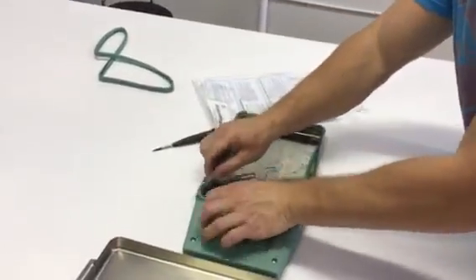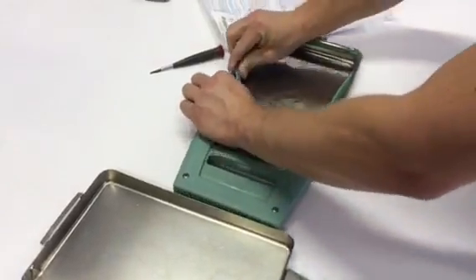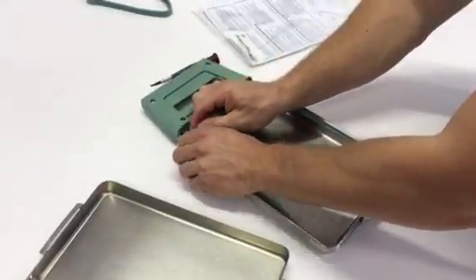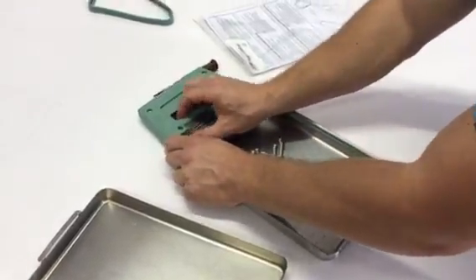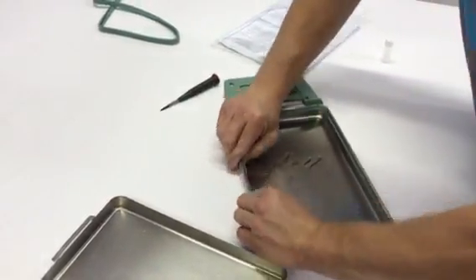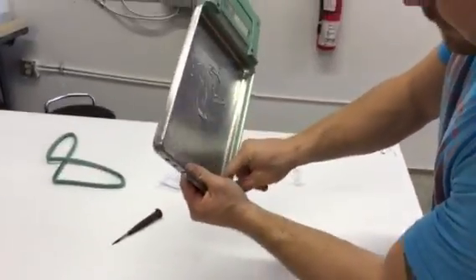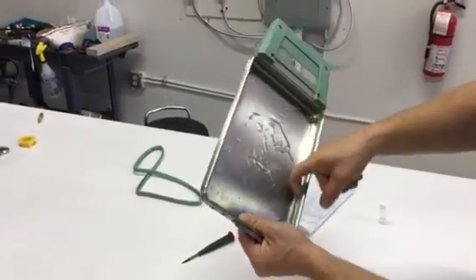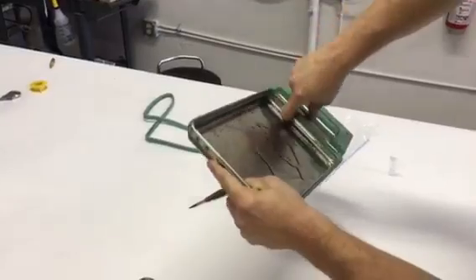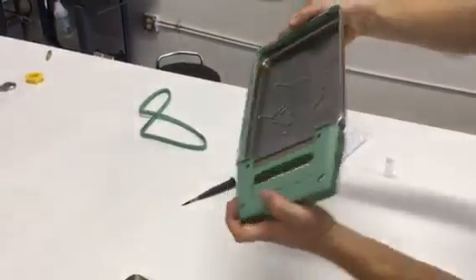Then you're going to want to go to the other corner. You're going to want to take your thumbs and spread it like this, put it in there. Last corner right here — spread it out. Then you're going to want to take the lube and with your finger go inside the wedge. Run lube inside the wedge. Make sure everything's flush. Then you're going to want to visually inspect and make sure that there's no kinks.